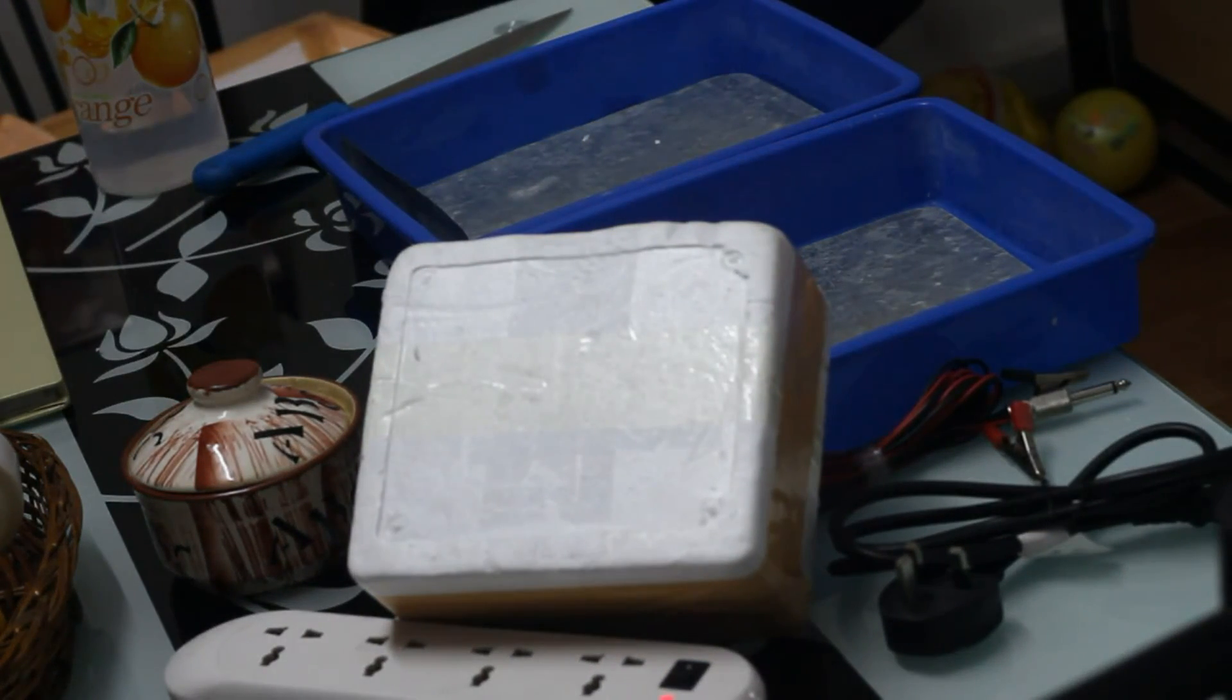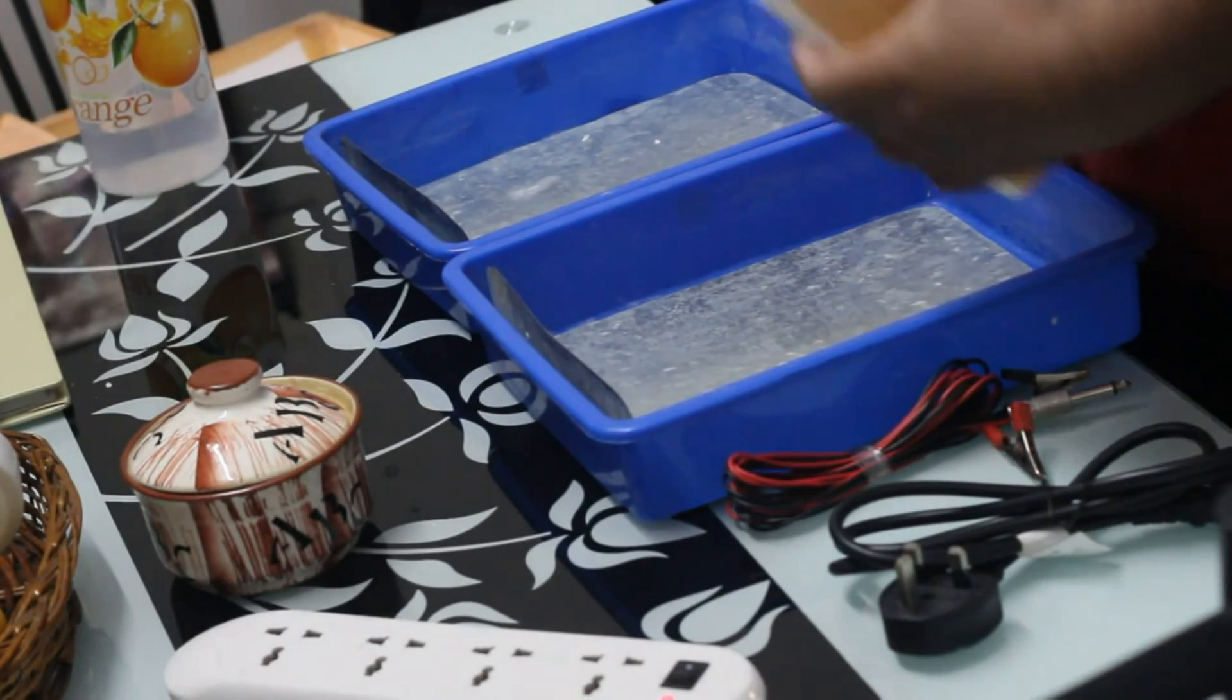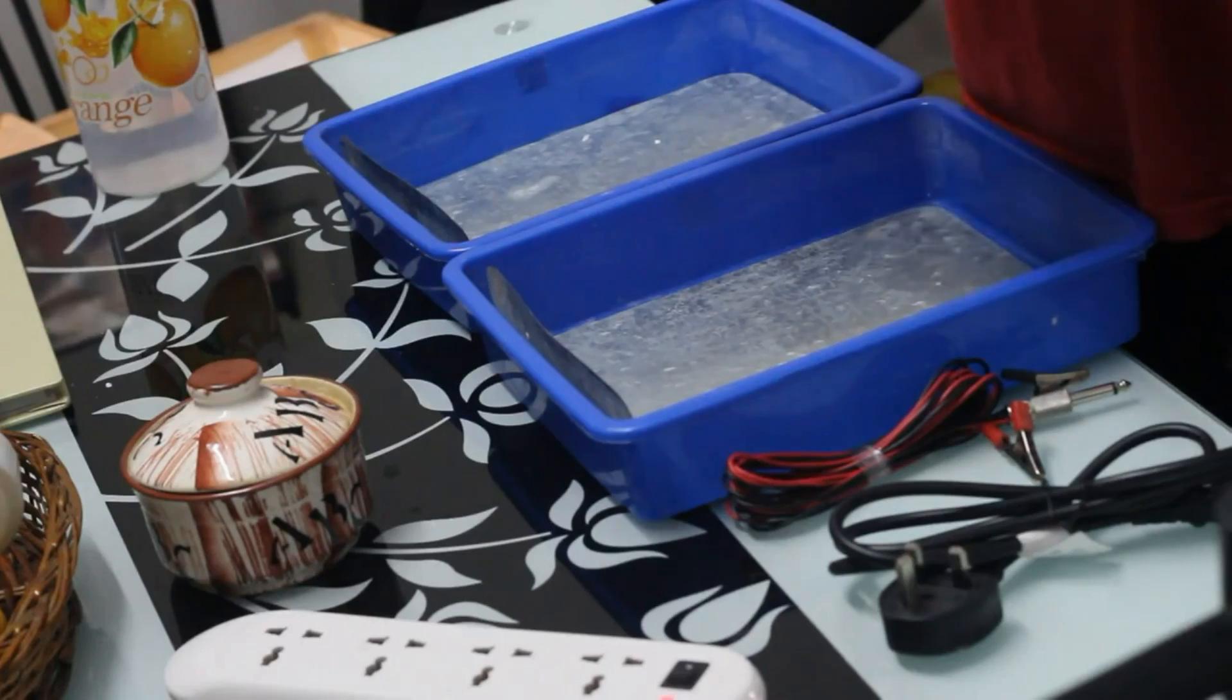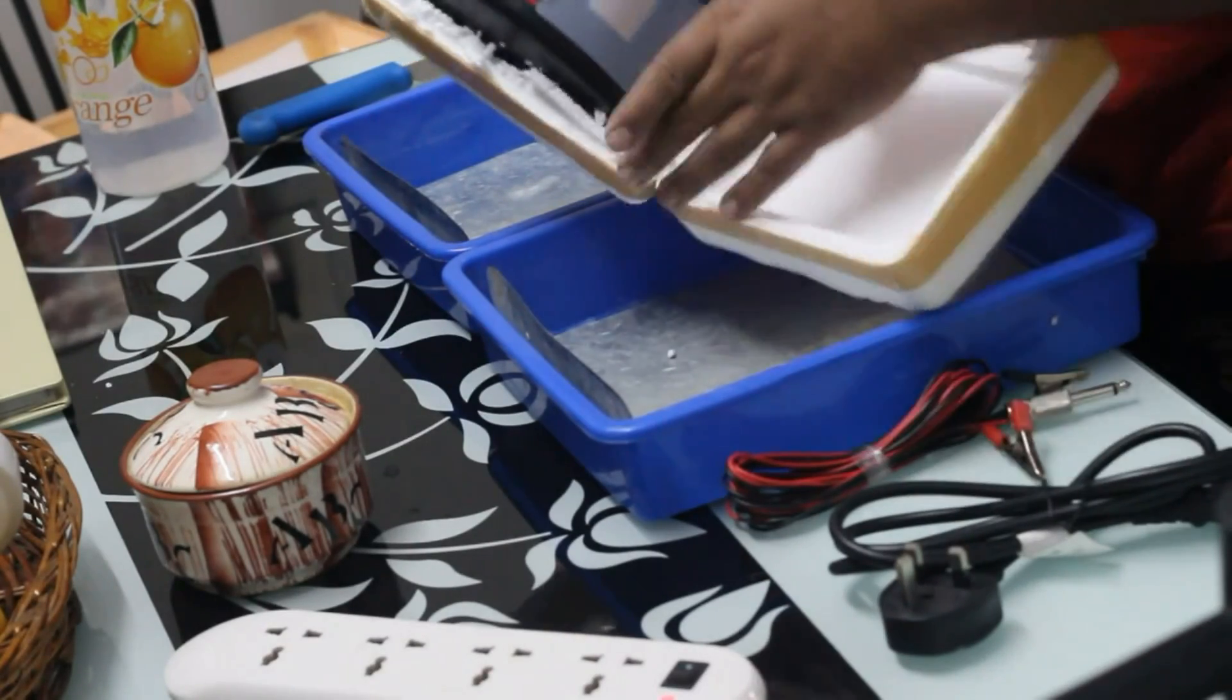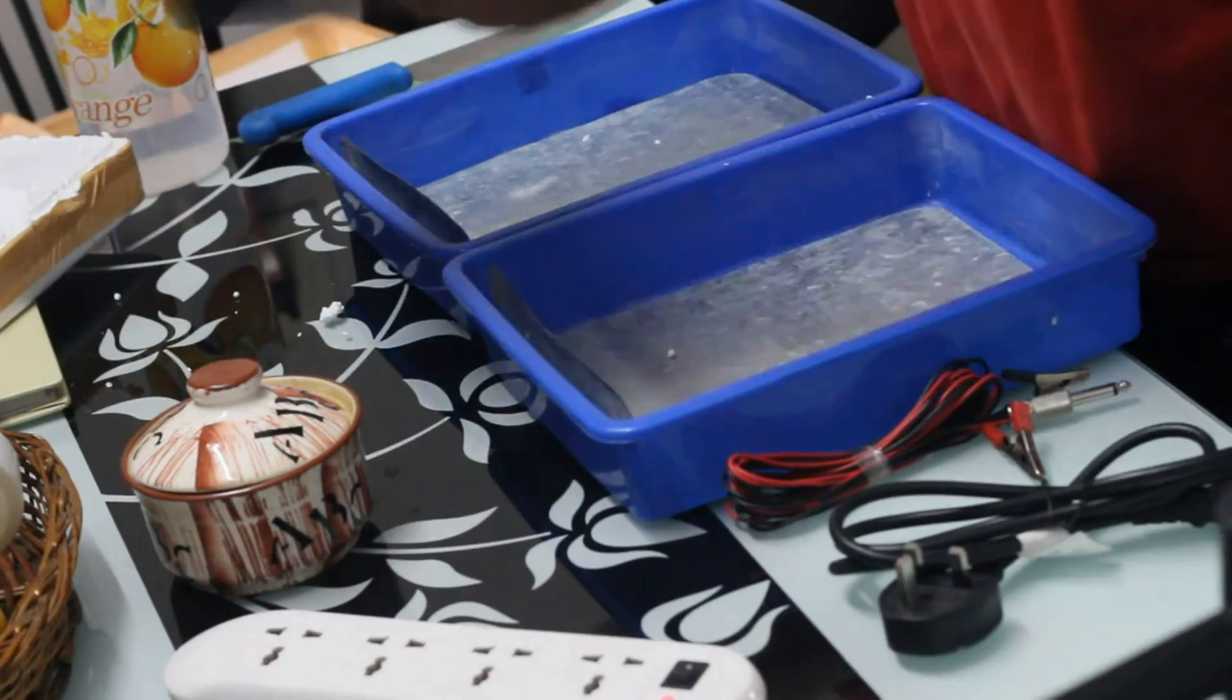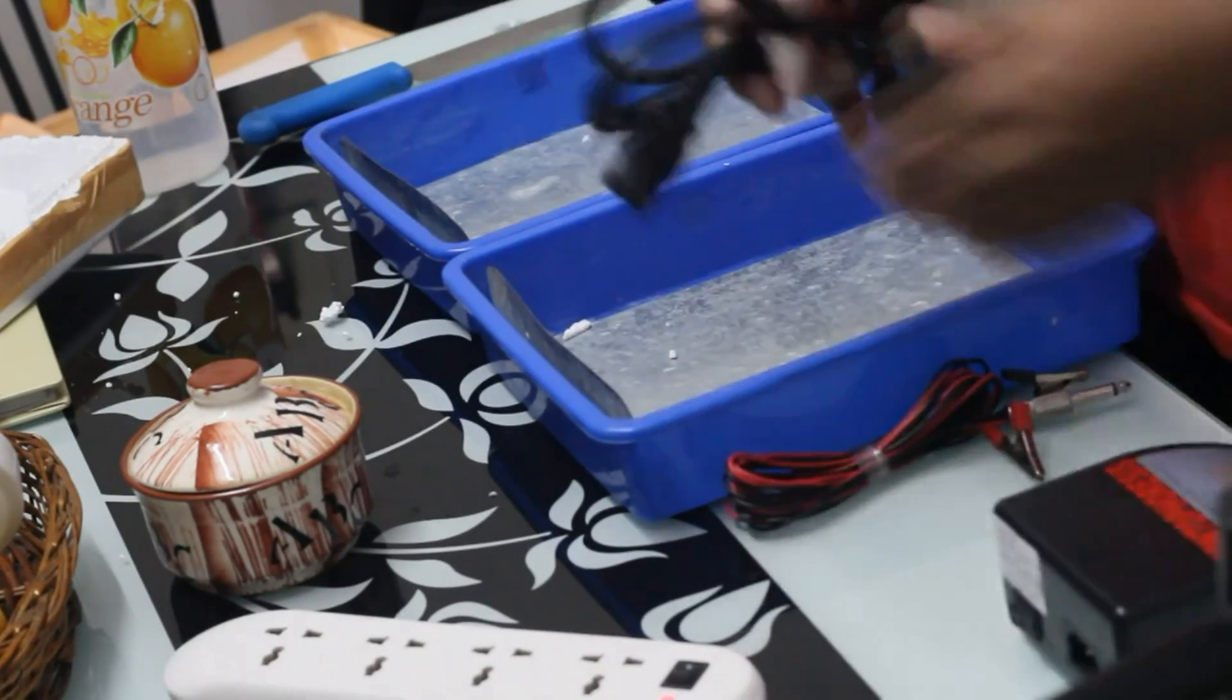Now, let us open this device. Sorry for using a knife, but I don't have any option right now. I have opened the package of the device. The device will come in the thermocol so that while delivery, there should be no harm to the product. That's why we keep this device in the thermocol.